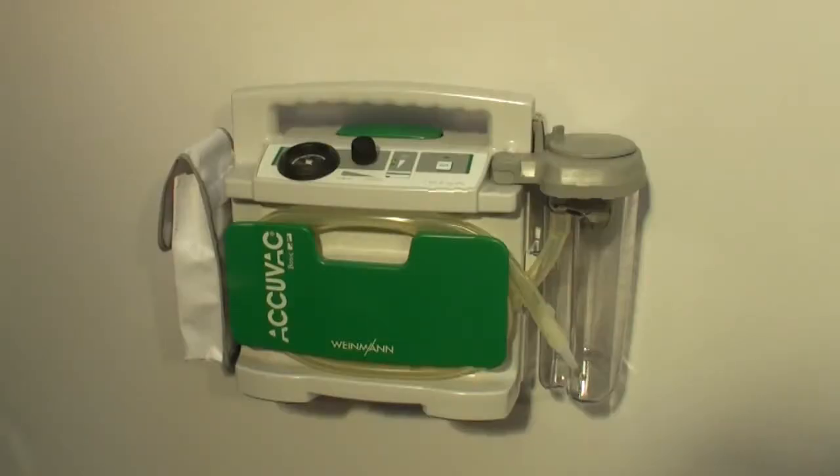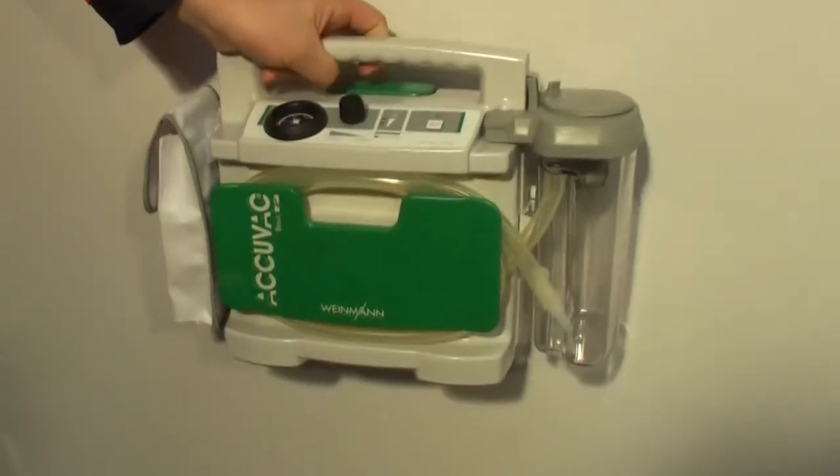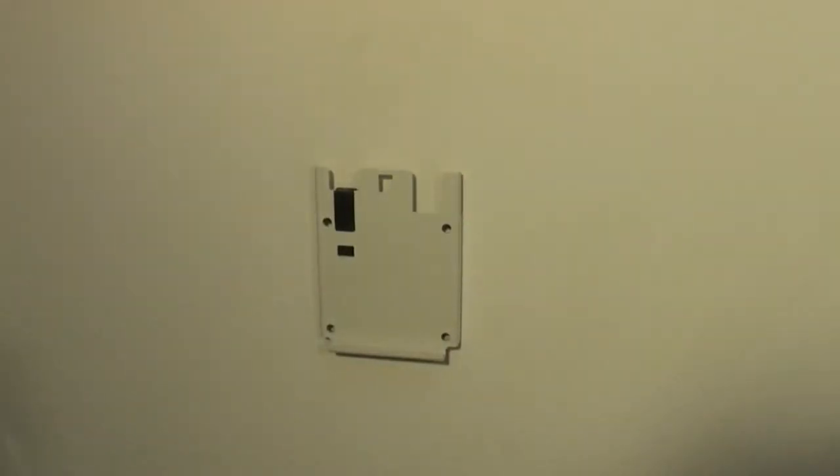The charging process is automatically terminated when AcuVac Basic is removed from the wall mount. Make sure to keep the green key pressed down so that you can pull the AcuVac Basic up and out of the wall mount.